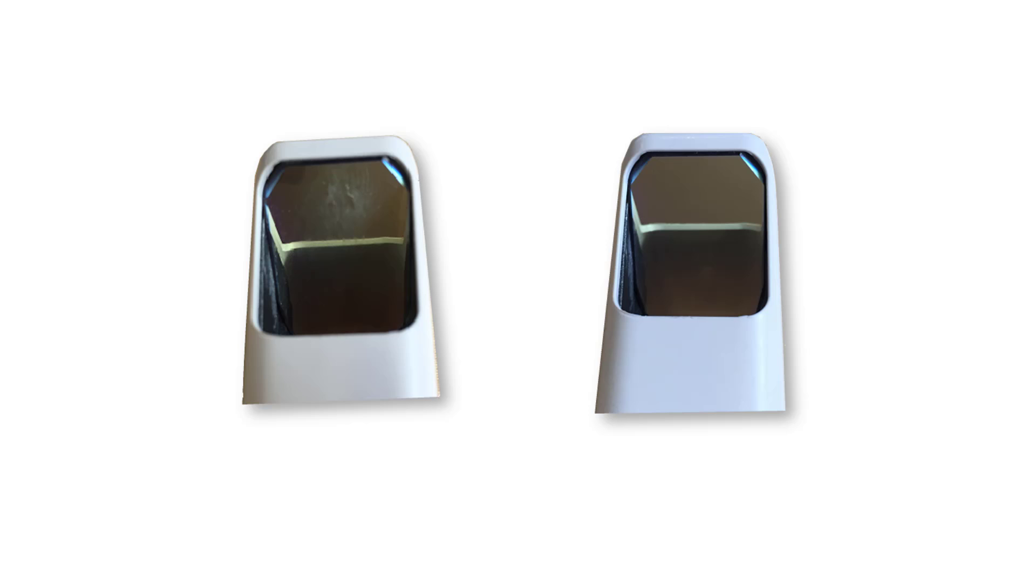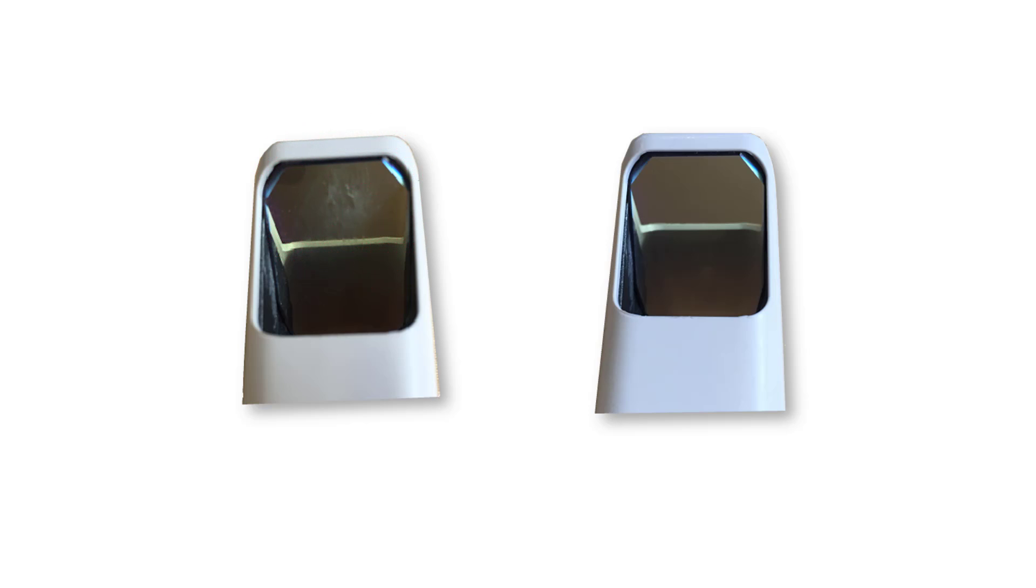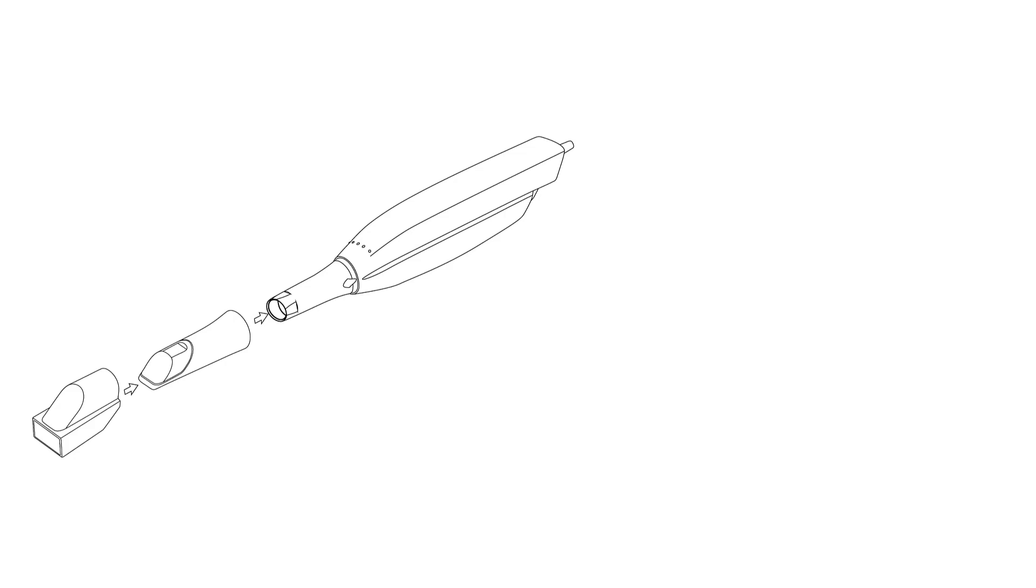First, carefully examine the mirror of the scanning tip. The mirror must be cleaned and sterilized, free of scratches, water stains and dirt. Afterwards, attach the tip to the scanner facing downwards and put the color calibration adapter onto the scanner tip.